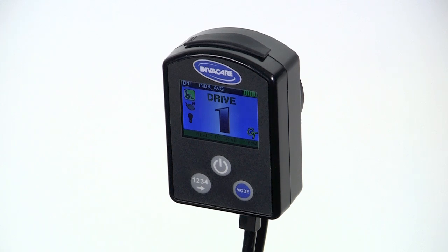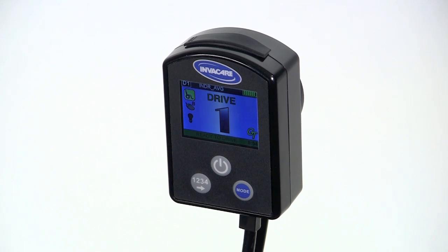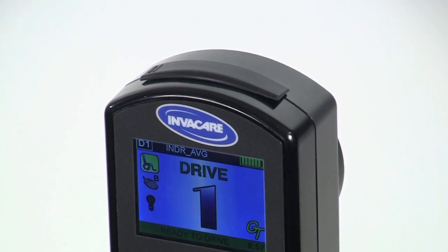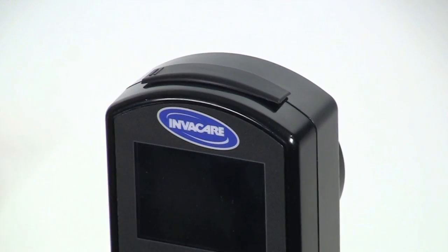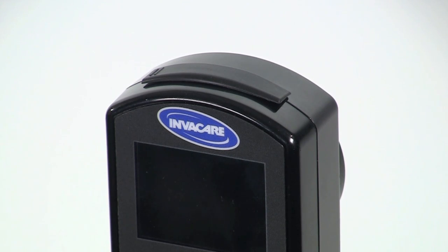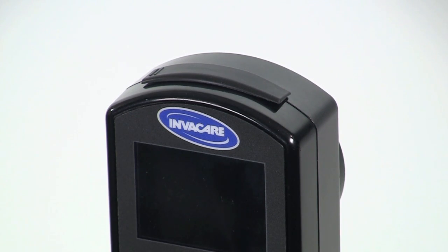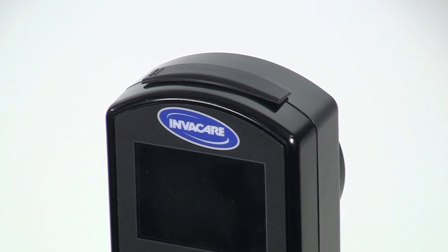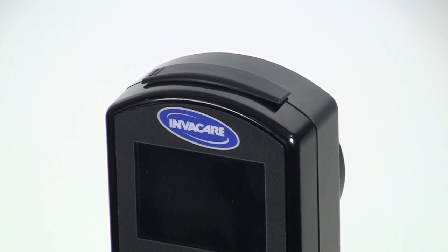Now that your Mark VI Professional Card has been updated to the latest software, it's time to update the software on your wheelchair. With the wheelchair turned off, take your Mark VI Professional Card with the latest software and insert it into the SD card slot of the Mark VI Display, Mark VI Joystick, or Mark VI Color Mini Display.